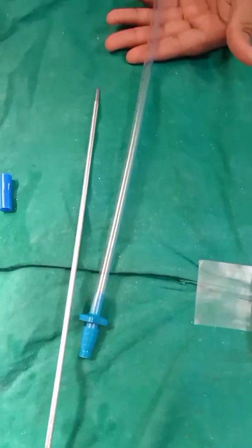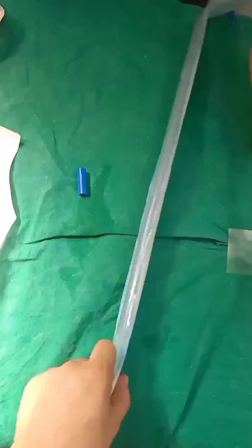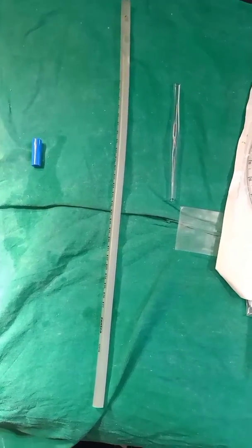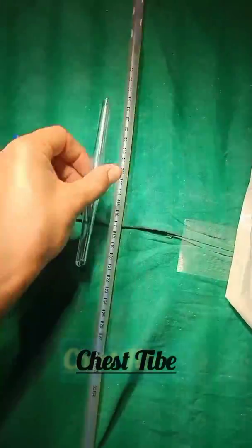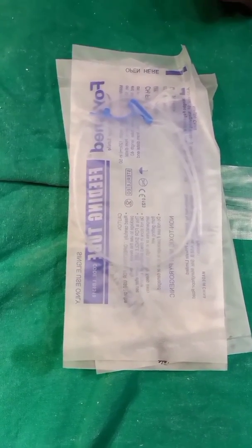Now you are seeing the simple chest tube. In 80% of cases of chest trauma, you will use chest intubation. It is used for pneumothorax, hemothorax, empyothorax, and chylothorax. You will place it in the triangle of safety.